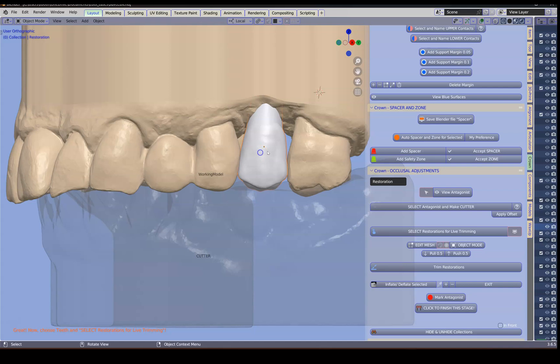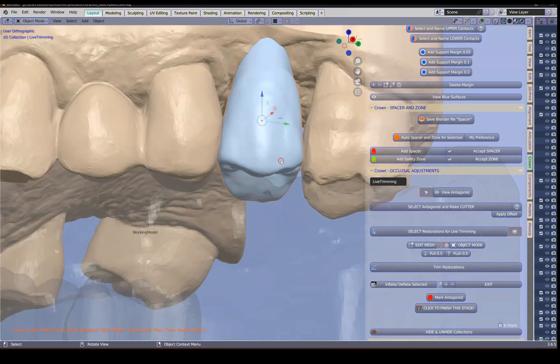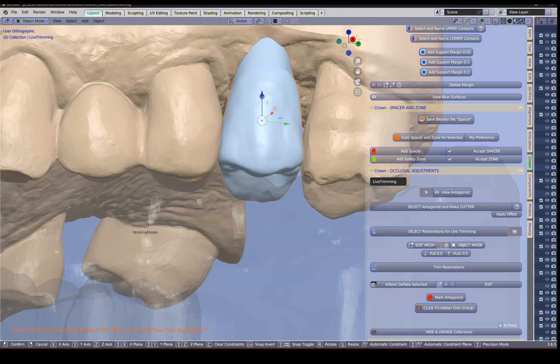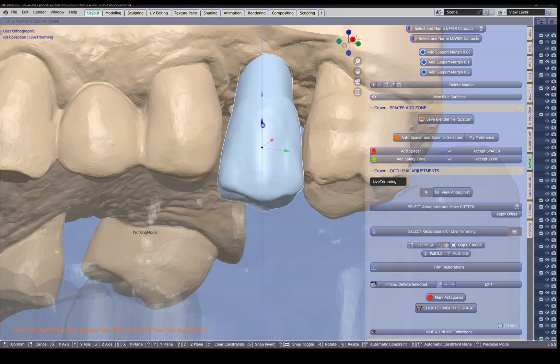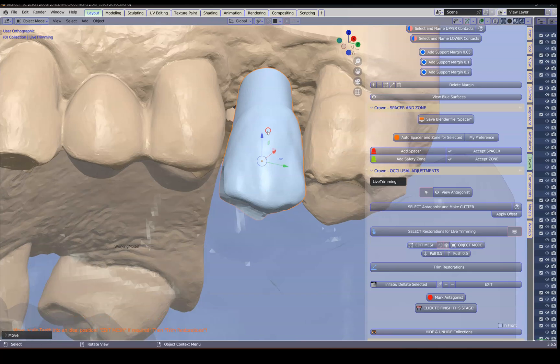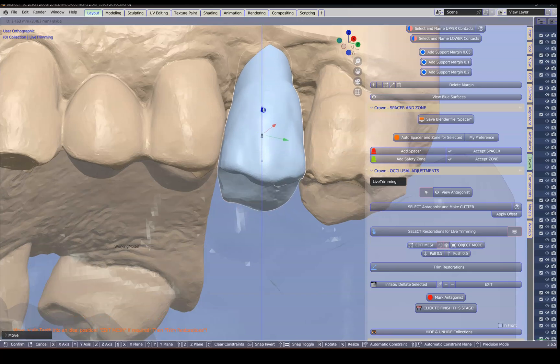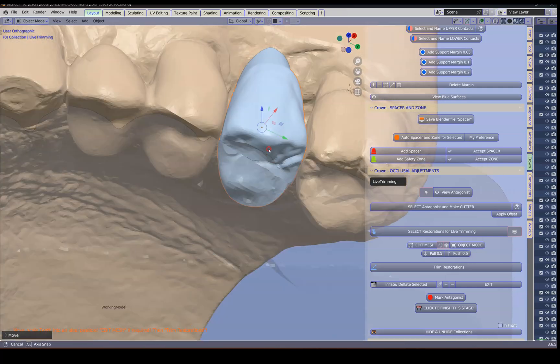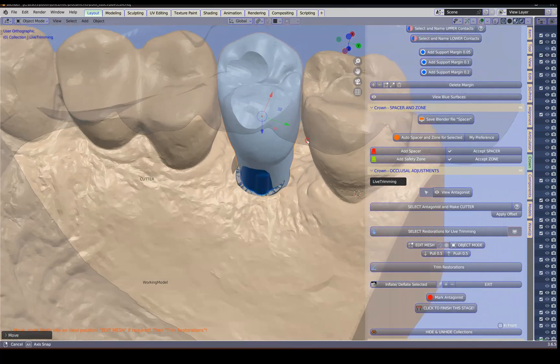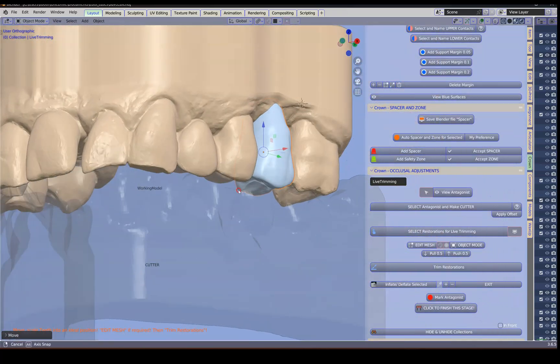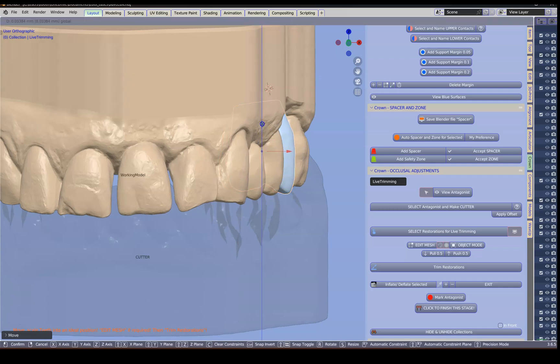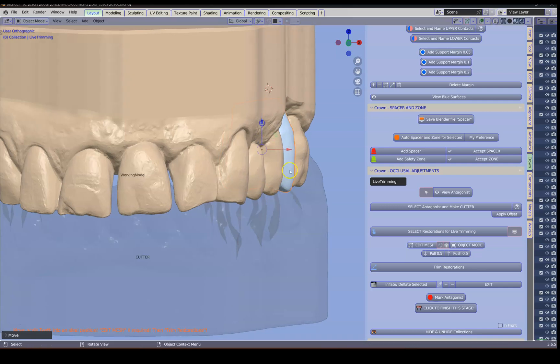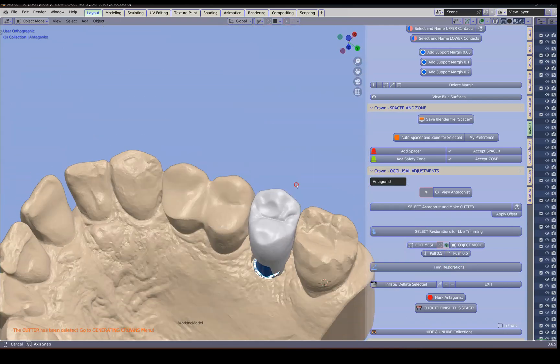Then we're going to take this tooth. This is our restoration. And we can then see this in live edit mode. You can see how it's actually cutting while we are moving this tooth. So here I want to reach a compromise. I don't want to cut all of the tooth away. But I also want to get the buccal corridor correct. Something like that. We're going to trim this restoration.